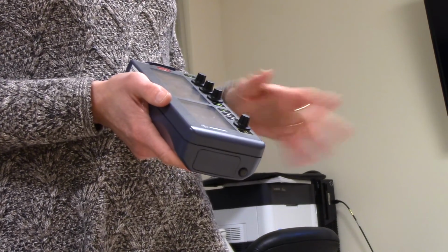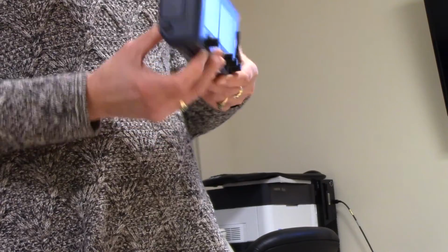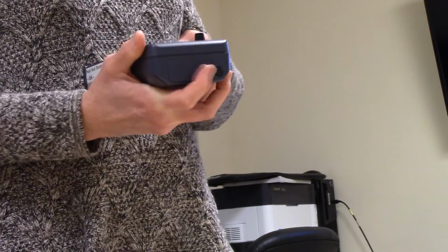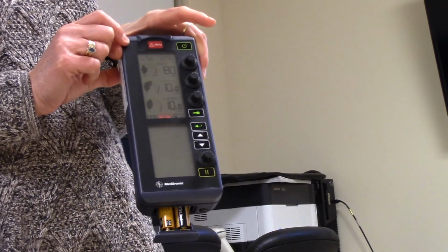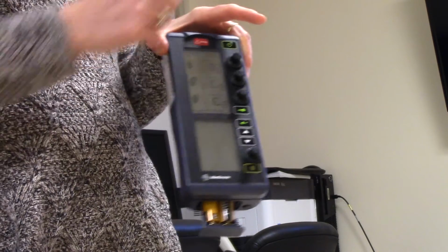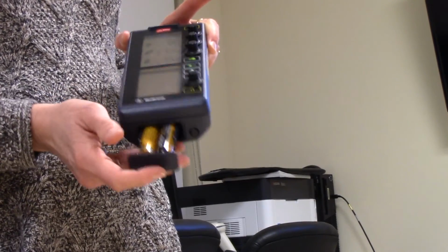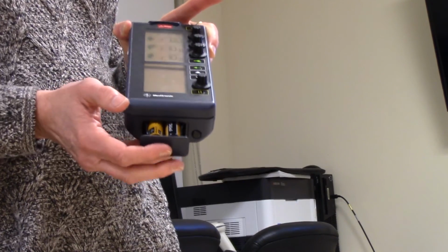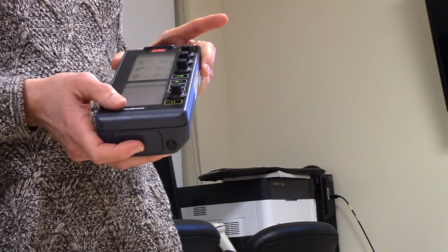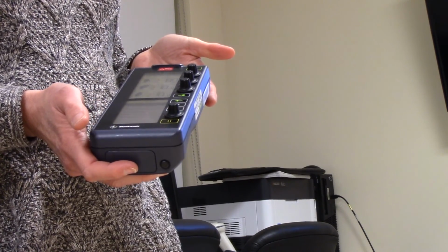We don't recommend doing it when it's hooked to a patient, but if you do, lock it, click this out, and it will continue to pace for about 30 seconds. And that might be the broken one. It's not really working. So you do have about 30 seconds worth. Again, we don't recommend doing it that way, but sometimes you don't have access to another pacemaker.